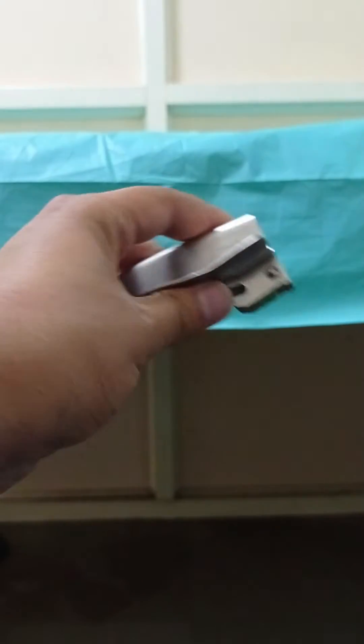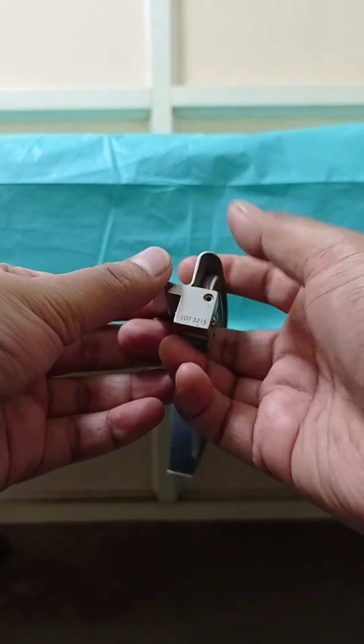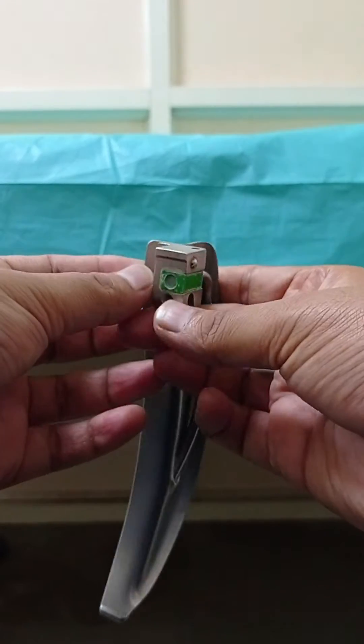This is a laryngoscopic blade. At the back of the laryngoscopic blade, you could see the size number.